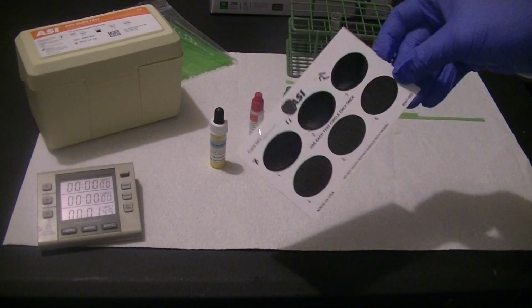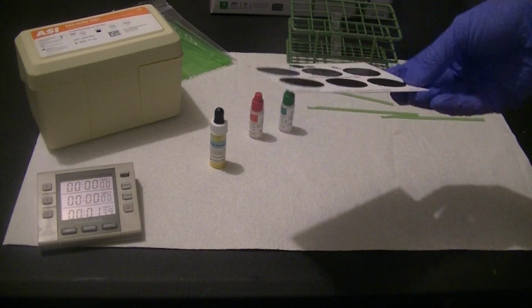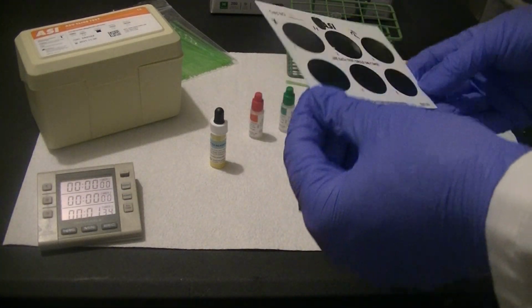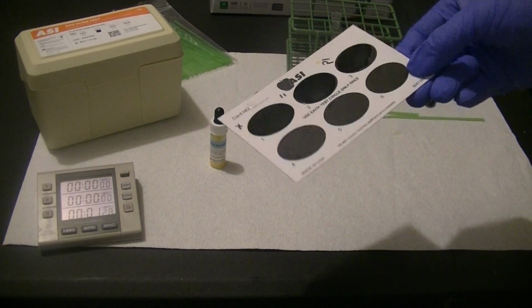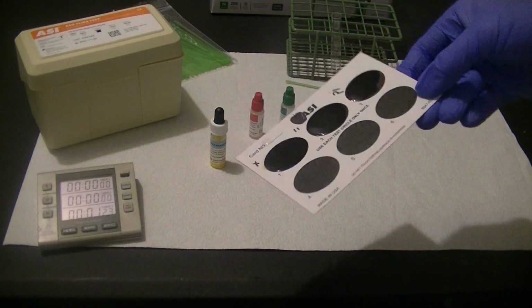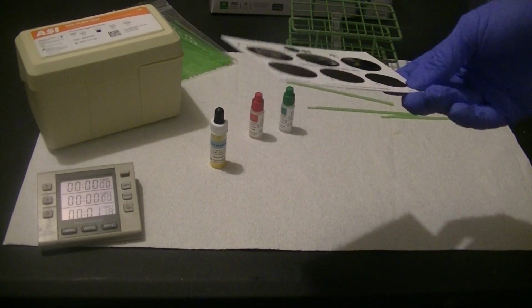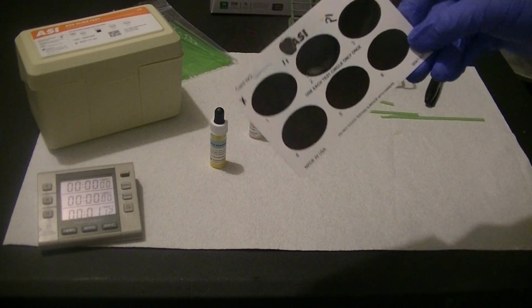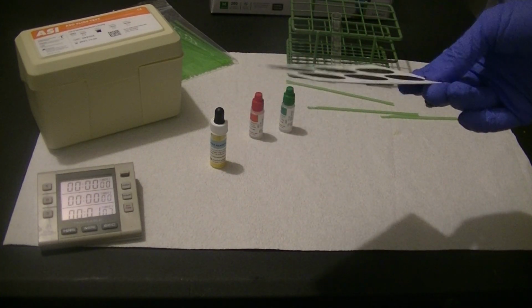So when you guys think about strep throat, you probably think about a different test being performed. And that would be the strep test or the throat swab for rapid strep. And I am going to be posting a video showing you how to do that test, but that test is actually something we would do earlier in the disease when the Streptococcus organism is most likely to be still in the throat area. We would do an ASO test looking for antibodies to this toxin later in the disease, possibly even after the Streptococcus organism had left the throat and started traveling to other parts of the body.